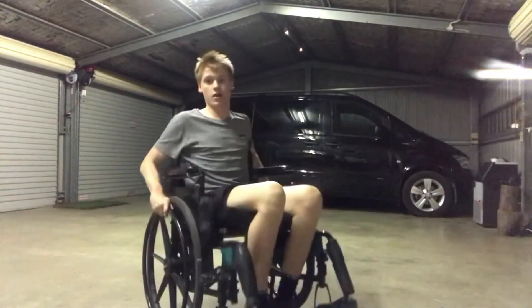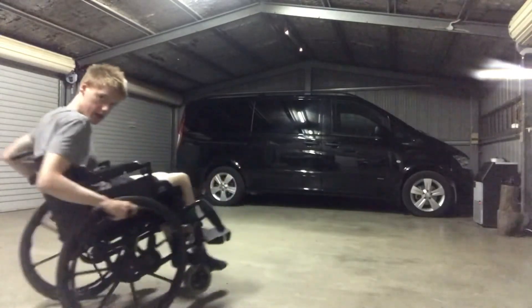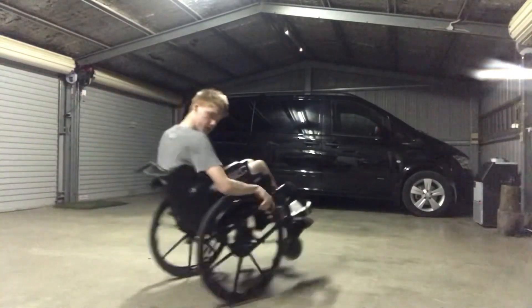Some other tricks: you can free your feet just like that, do tricks. You can do 12 o'clock like that, or hands like that.